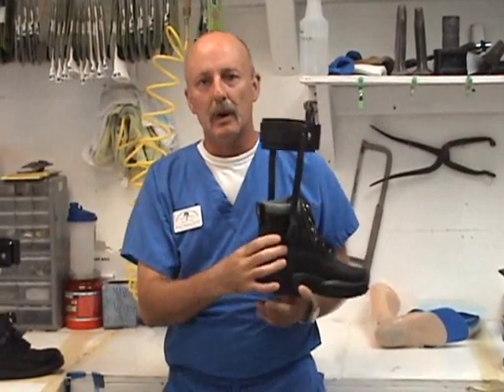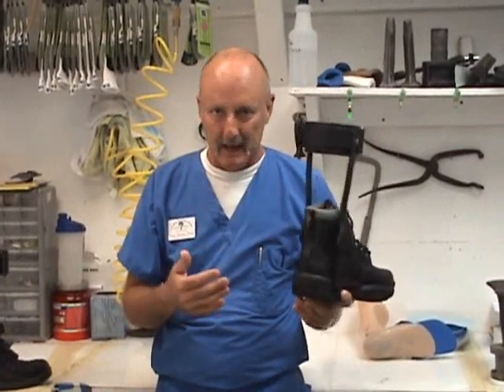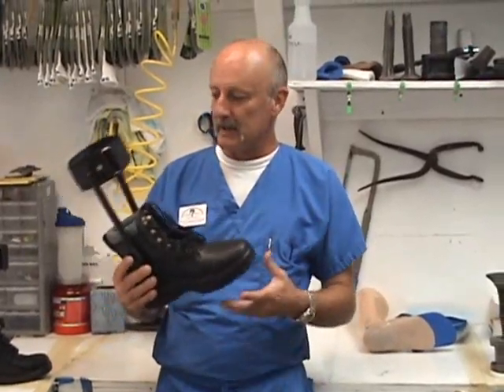You go to a metal brace when plastic isn't indicated for whatever reason — the patient's diabetic, has fluctuating edema, is insensate, and so on. The physician makes the call as to whether it's plastic or metal.